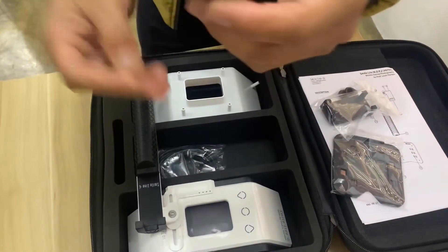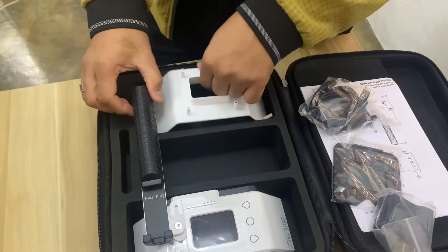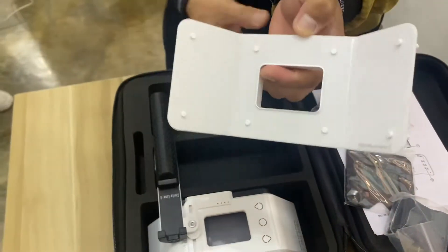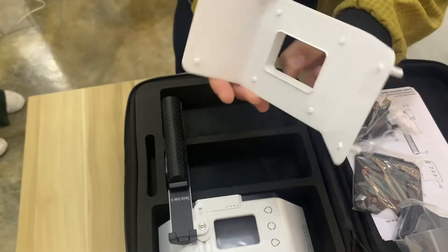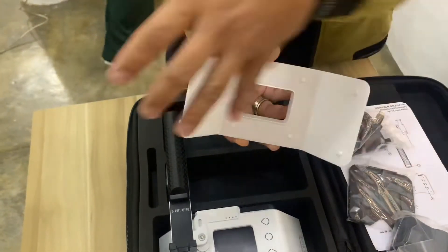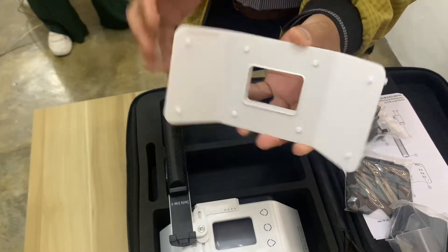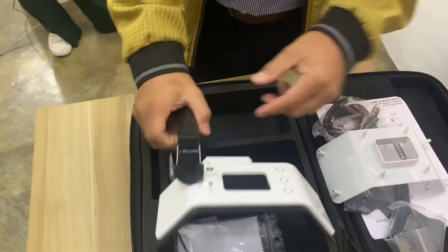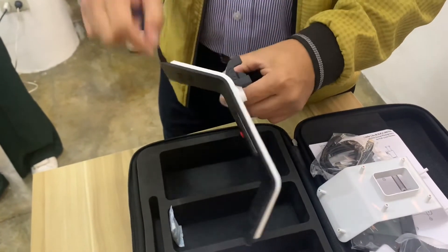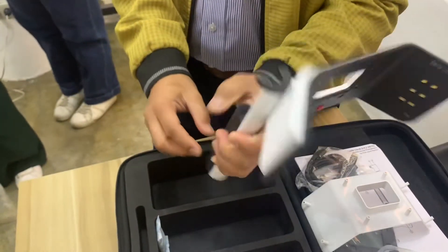Of course there's the plug and the charger. We also have the complete full diffuser — before it was divided into two sides, but now it's a complete set with a polar diffuser. We have the full system — it's slim, sexy, yet so beautiful.